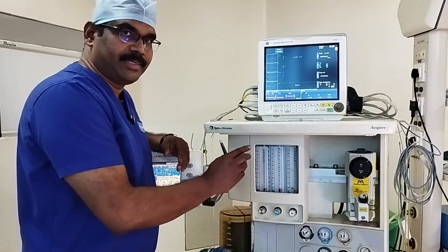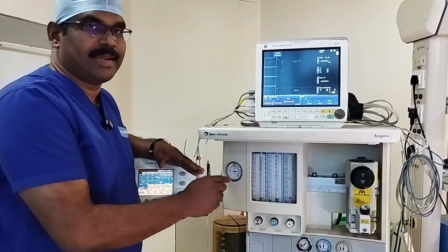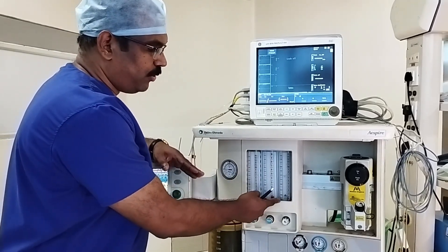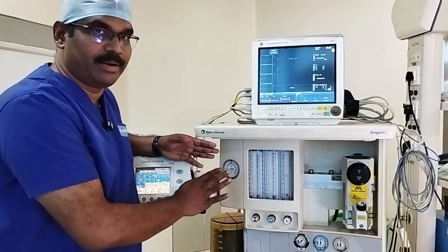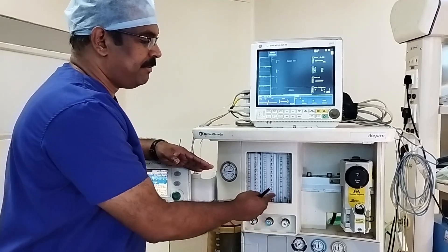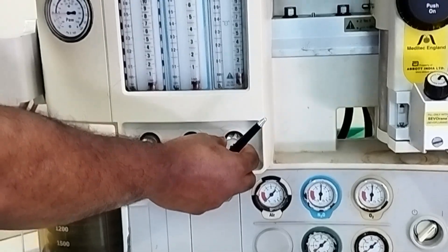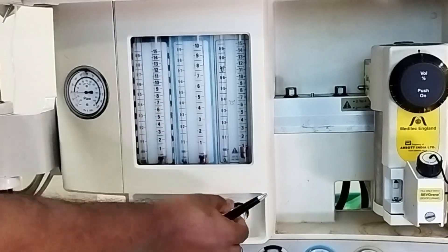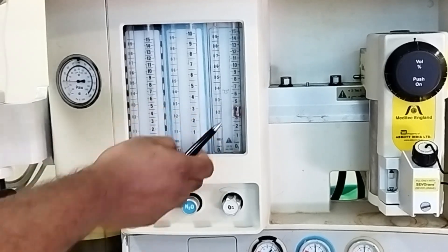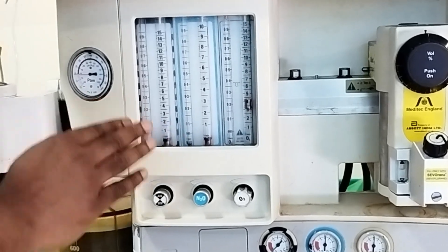Each flow meter is specific for a given gas — that means it is calibrated at 20 degrees Celsius at an ambient pressure of 101.3 kilopascals. So you cannot interchange an oxygen flow meter with nitrous oxide or air. This is also ensured by mechanisms like pin index during the assembly of the flow meter. When you open the flow control knobs, depending on the gas flow, the bobbin gets pushed up and you can read the level from the side tube to understand how much flow is actually happening.